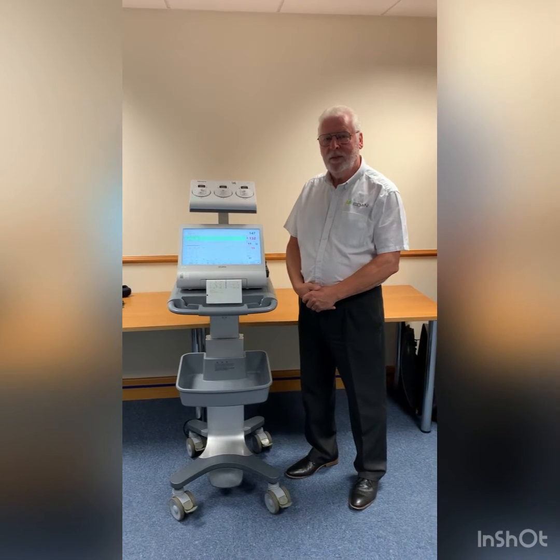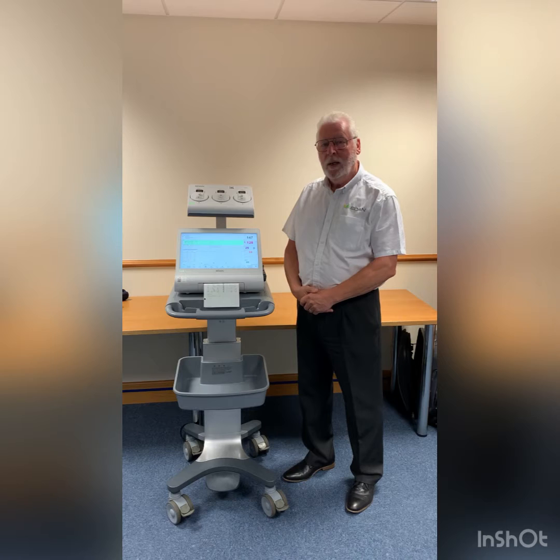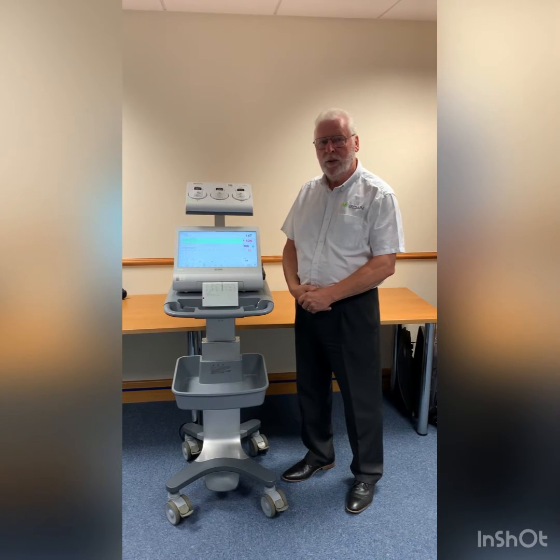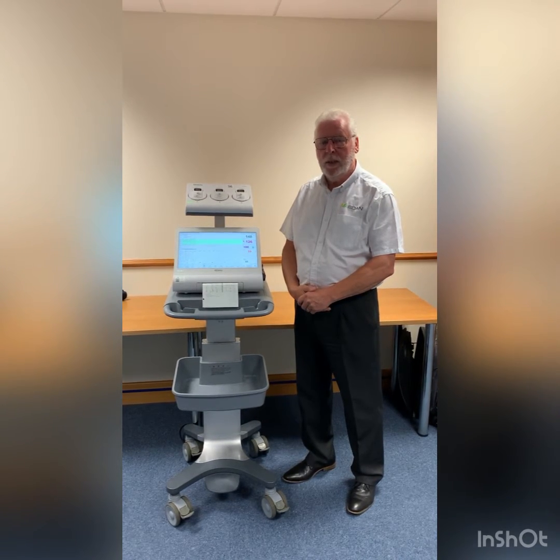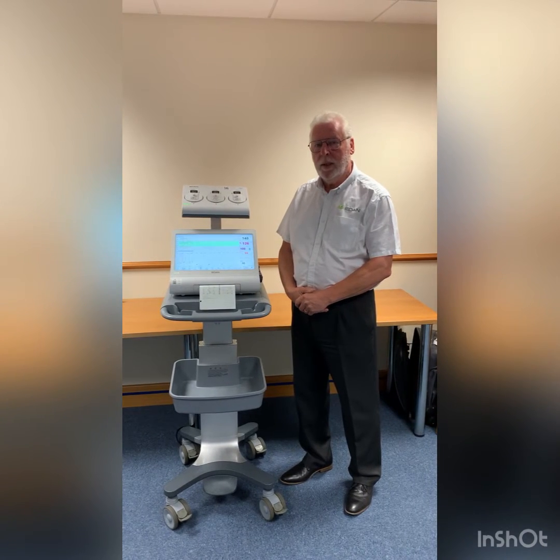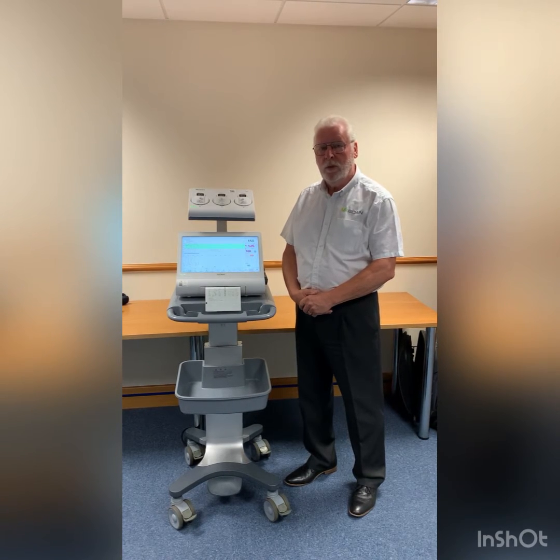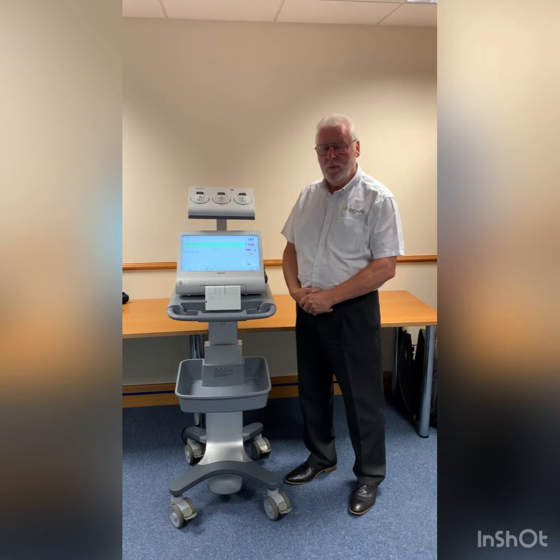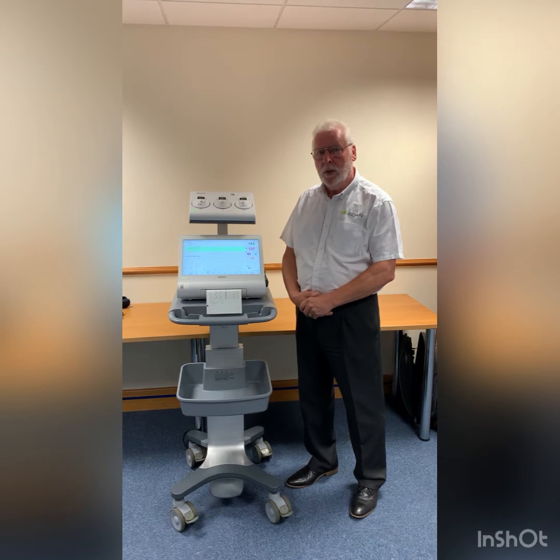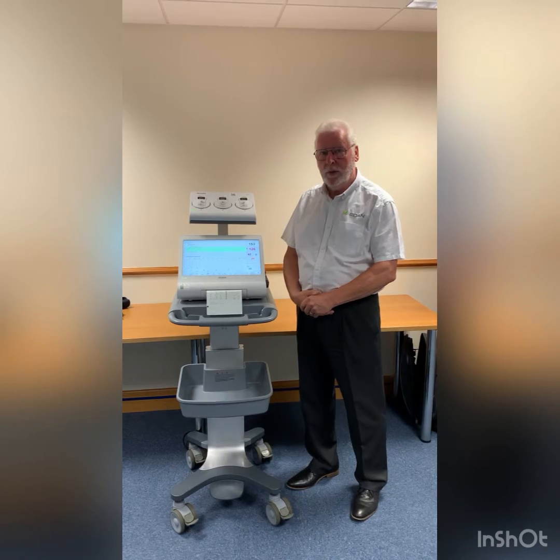Hi, once again it's Cliff. This is a short supplemental video to supplement the original videos where we showed you how you could interact with the EDAN F15. The reason for this short video is to explain how EDAN's CTG analysis 2 algorithm, more commonly known as computerised CTG analysis, actually works and how you interact with the machine during the monitoring period.